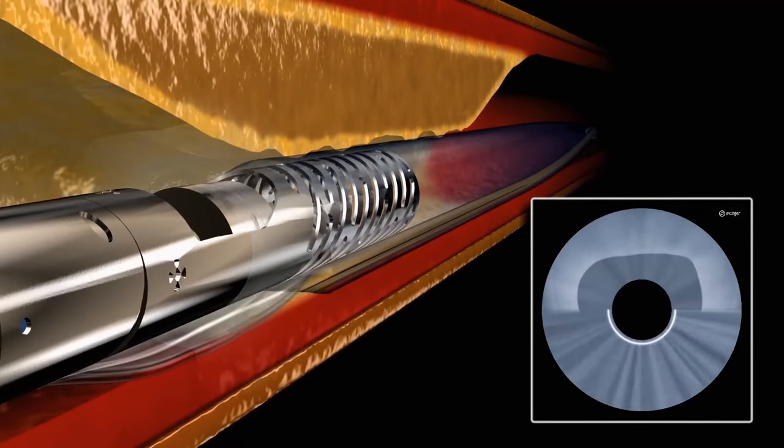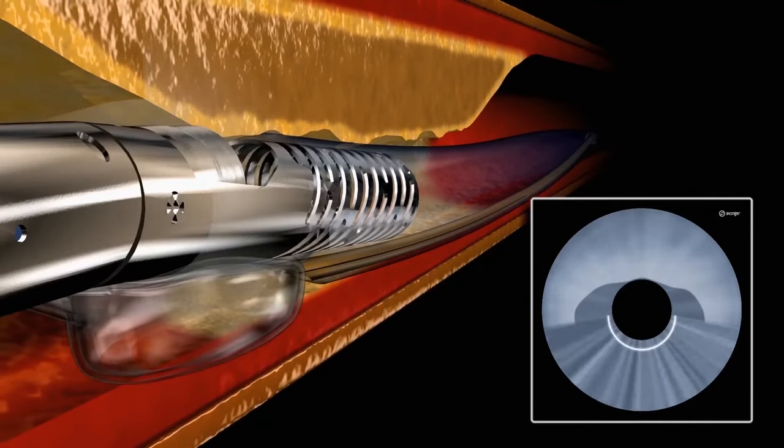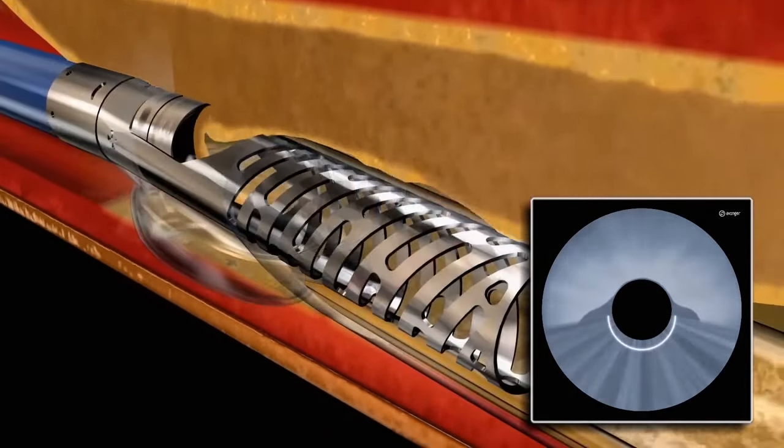On the working end of the device, there is a plaque excision mechanism sitting within a targeting window that allows the operator to aim, guide, and direct plaque removal.